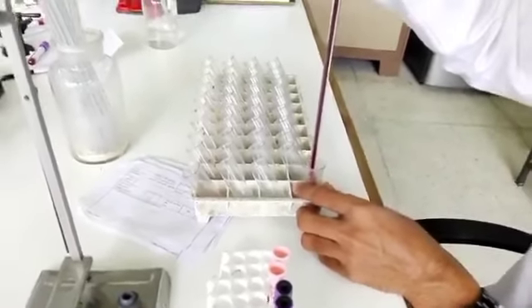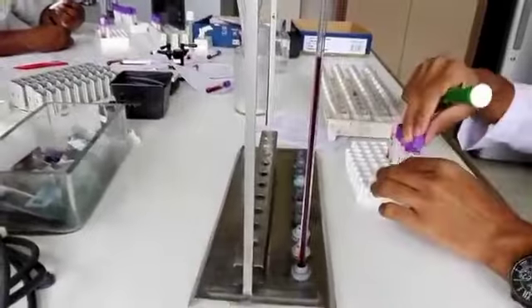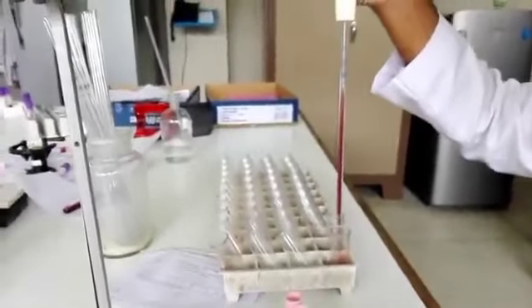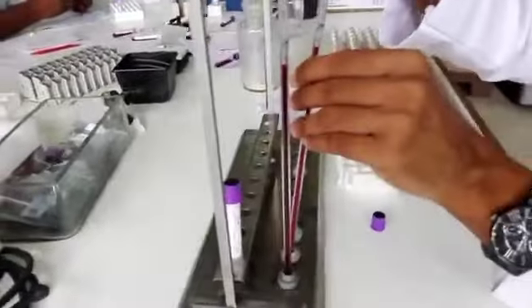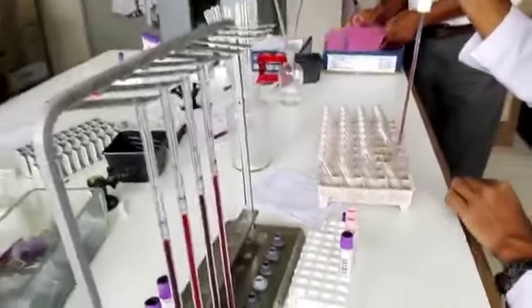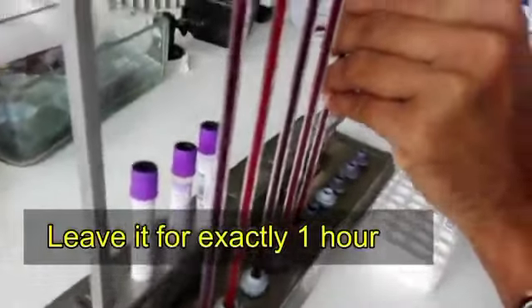After that, we have to mount the pipette carefully on the rack. After the mounting, we have to switch on the stopwatch without delay. Then we have to read the results exactly after 1 hour.